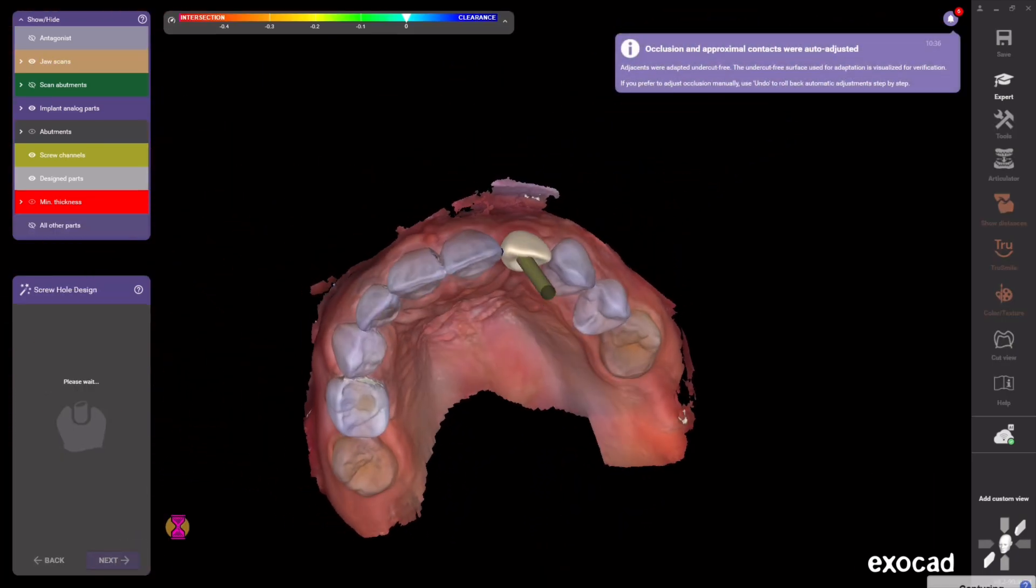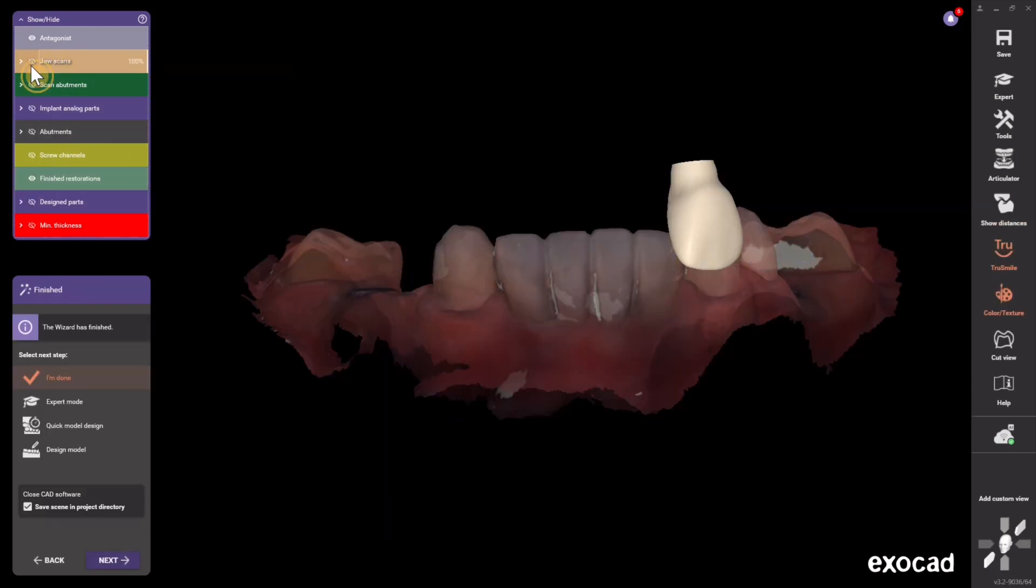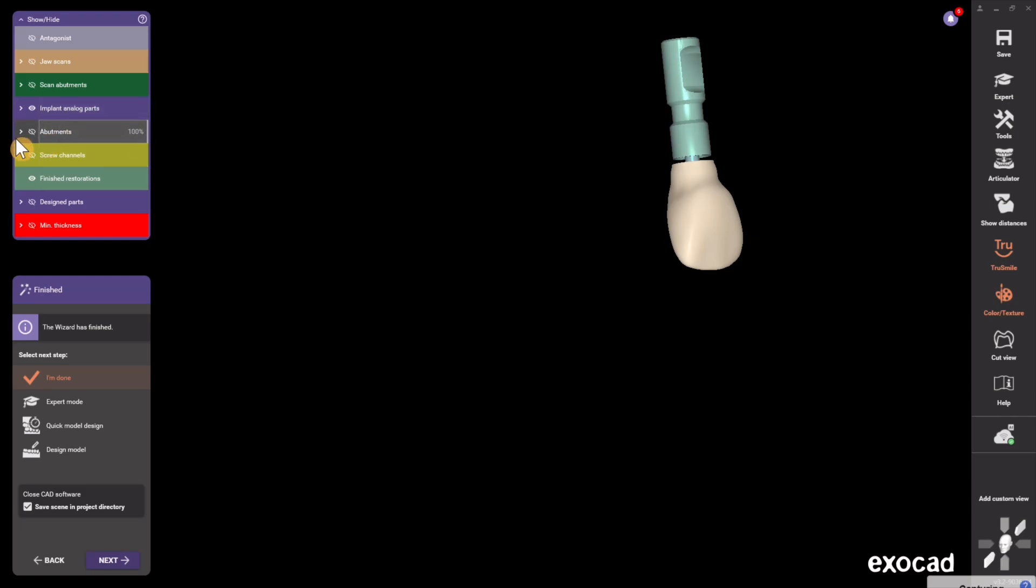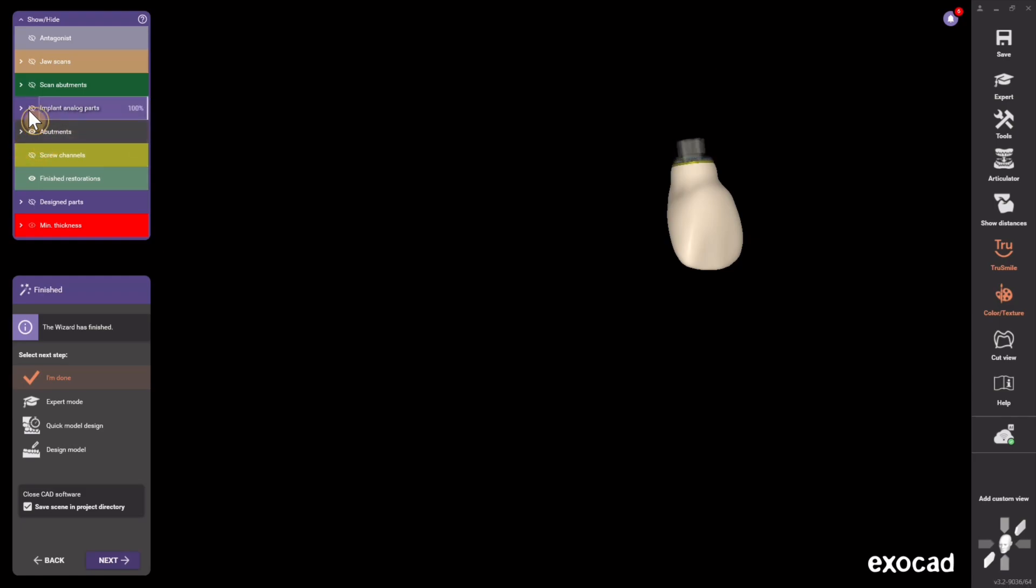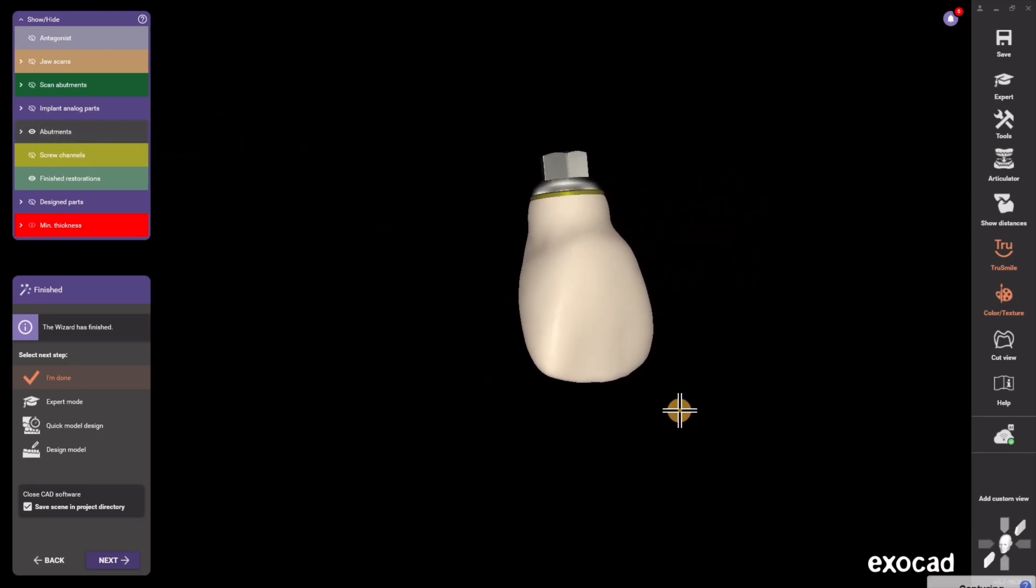Let's see what we get. Yep, so that is the end of design. Here's our little restoration and there's our analog. Here's our tie base right here and we can see how it goes under the tie base.